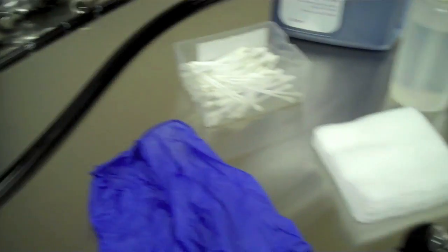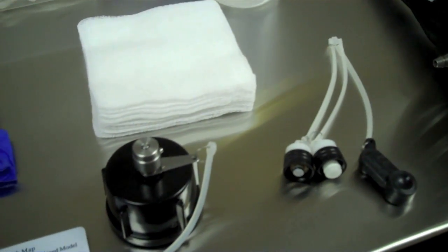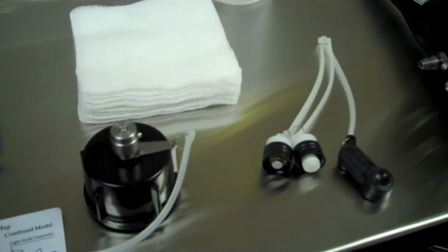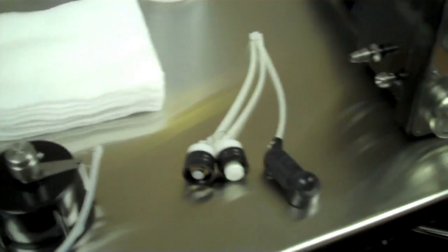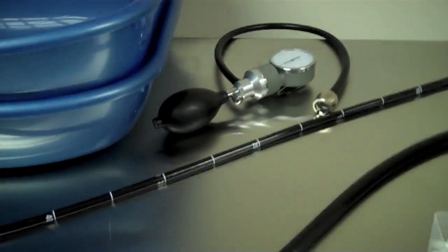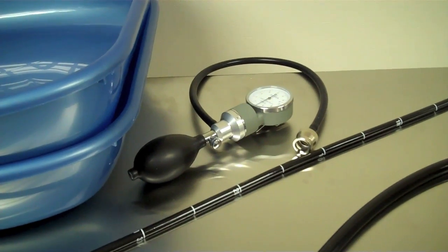Cotton buds and vaseline for putting on the endoscope inlet and outlet and suction buttons. You will also need to make sure you have your airtight cap and the plugs that you need to put in for cleaning, and also your airtight sphyg.